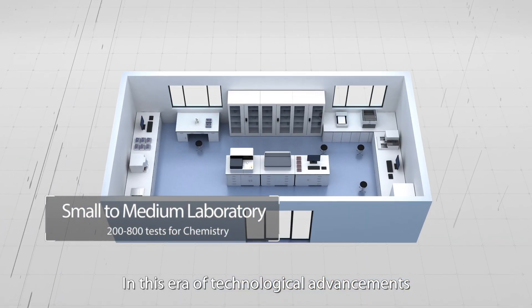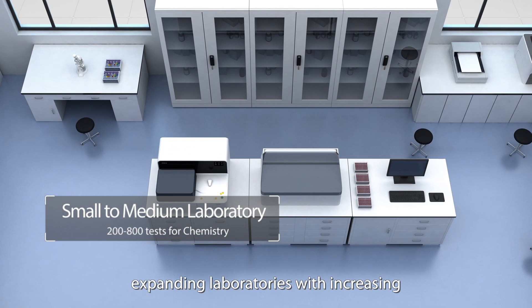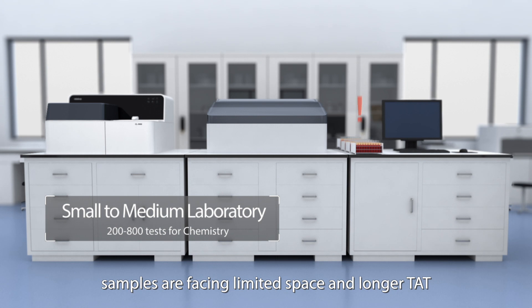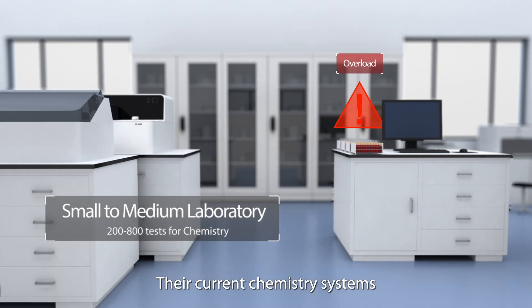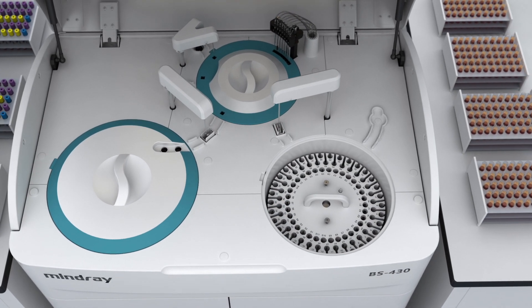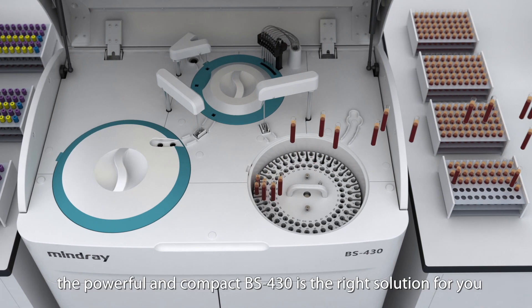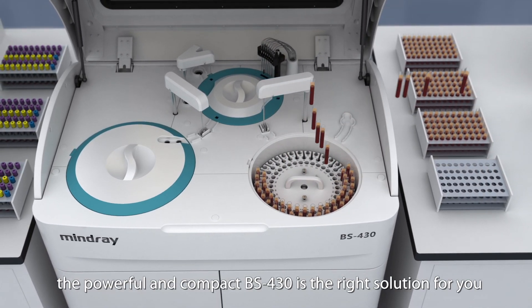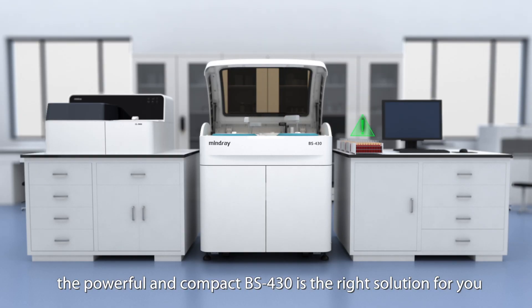In this era of technological advancements, expanding laboratories with increasing samples are facing limited space and longer TAT. Their current chemistry systems may not be able to meet the growth in demand. In this situation, the powerful and compact BS430 is the right solution for you.